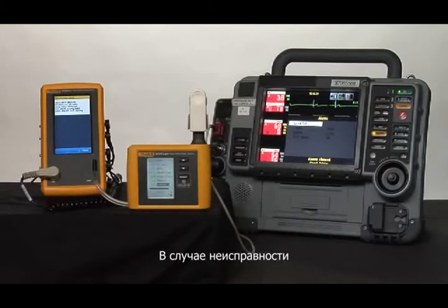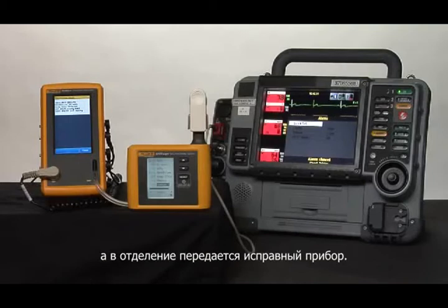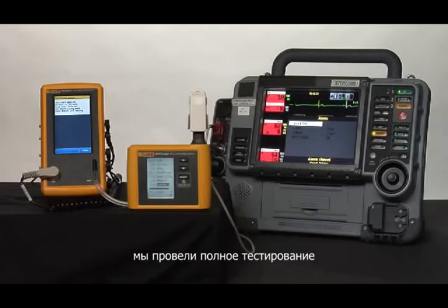If it were faulty, we would remove it from clinical use, replace it with a different patient monitor, and very quickly you can see we've done a full check using both the ProSim 4 and Spotlight, fully portable, very functional parts of the ProSim family.